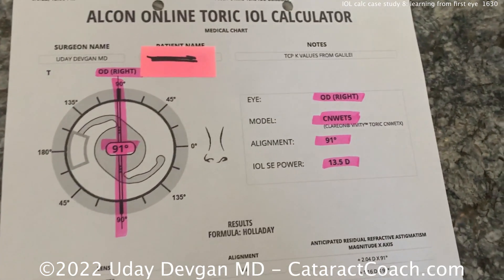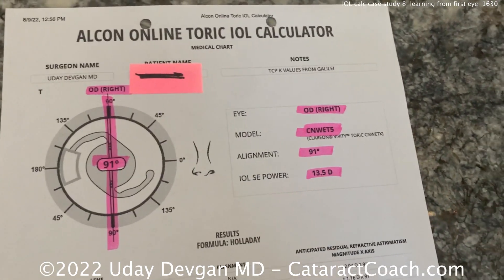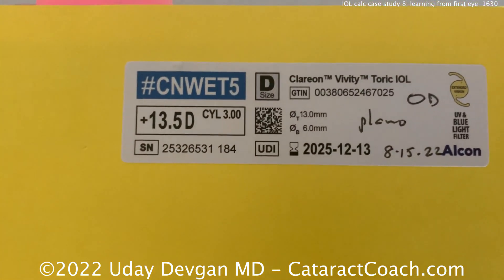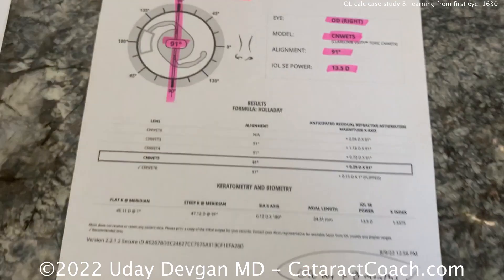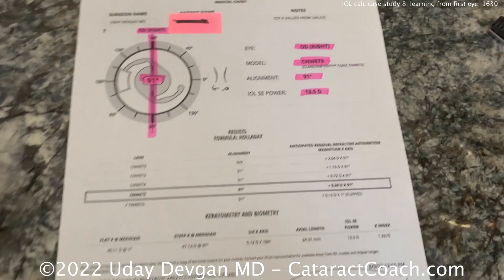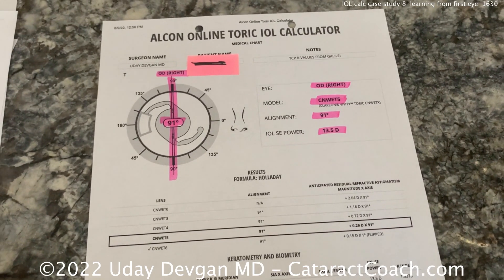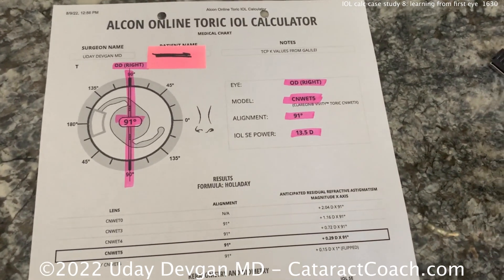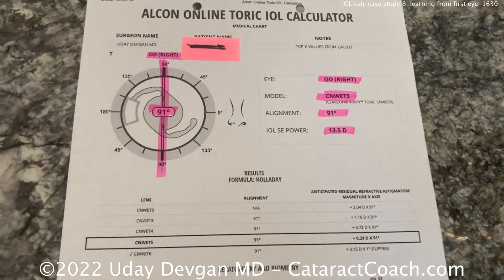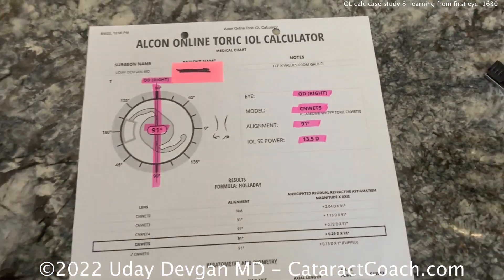But what did we actually end up putting in the eye? The patient had surgery, and the patient ended up a minus one myope. In an eye like this, it's understandable that calculations are going to be a little different.